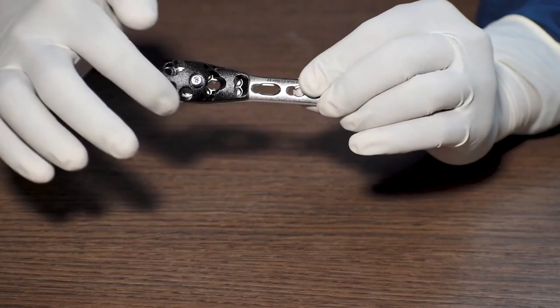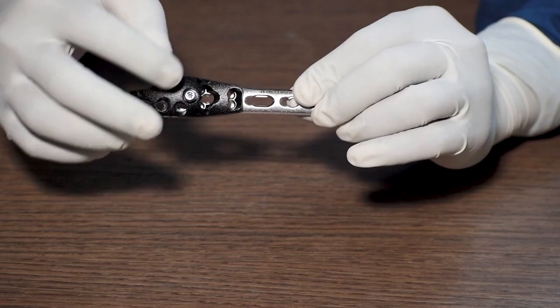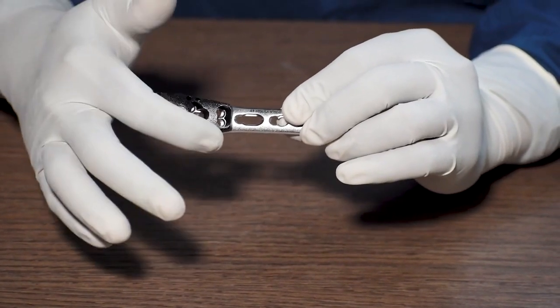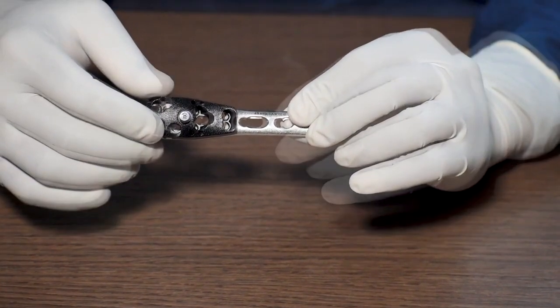The proximal part has got the same features. These are the holes for the screws and these small holes at the edge of the jig are the holes for the K wire.